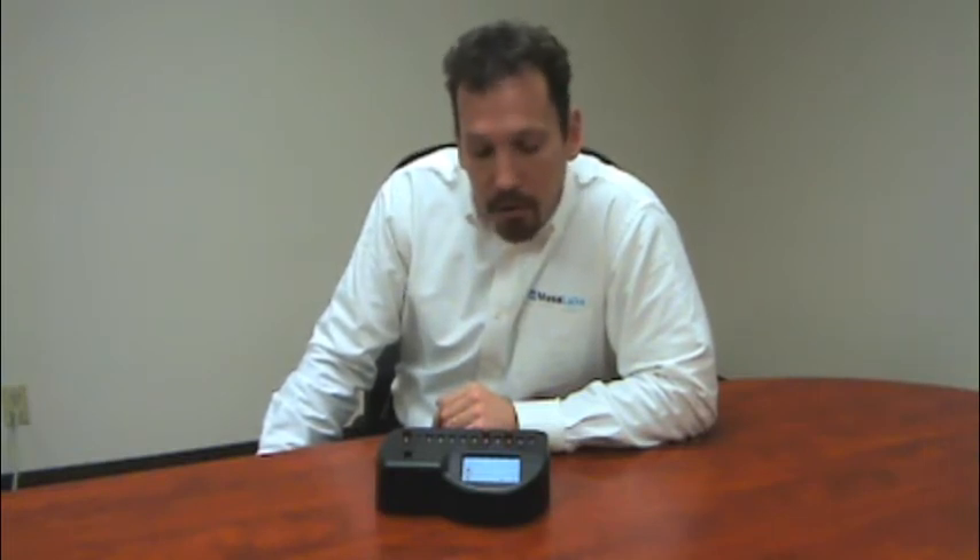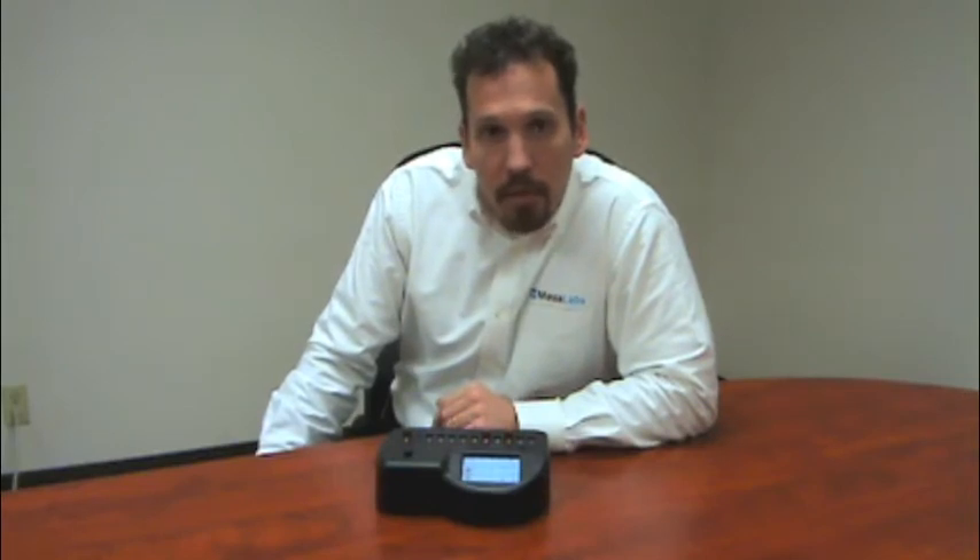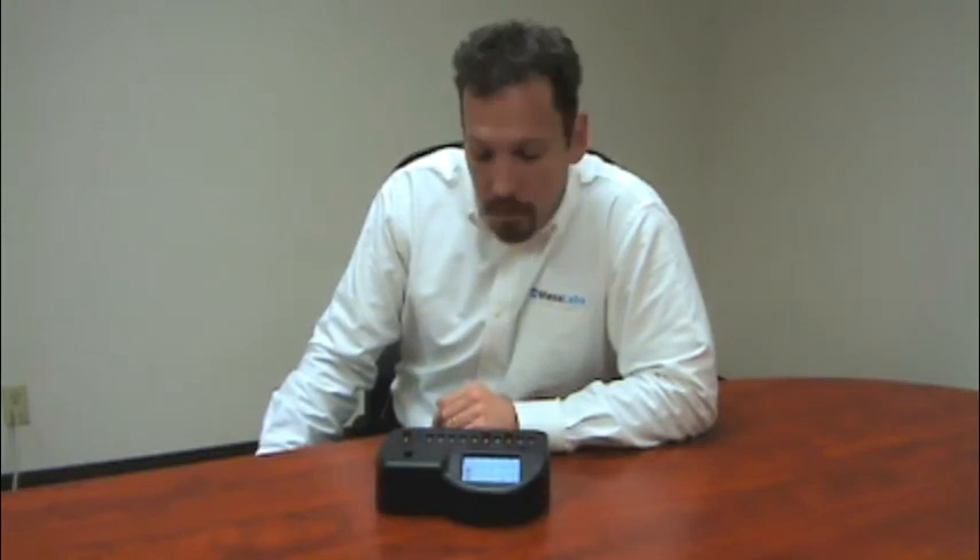Hello, I'm Garrett Krzyzewski, and we're here today to discuss the new SmartWell incubator. It's the Model 1710, and we're here to present some of the changes to this new version of incubator. In particular, we're going to focus on the new BI Insert Wizard, which makes it more user-friendly for everyday use.